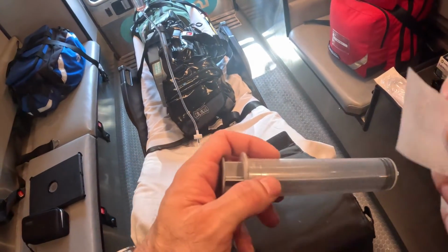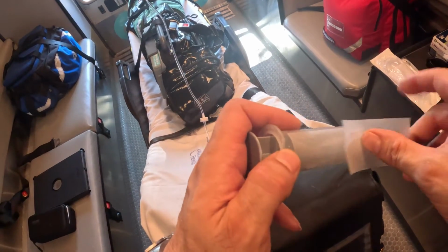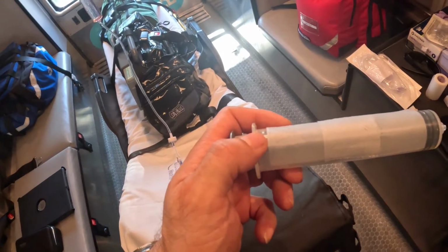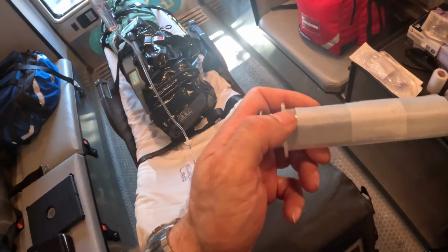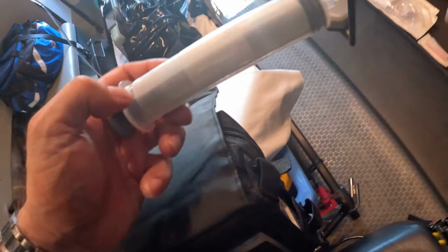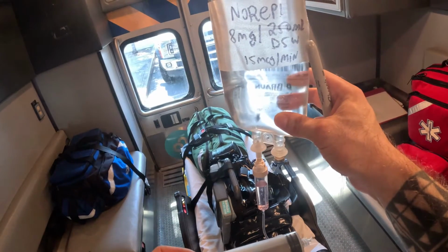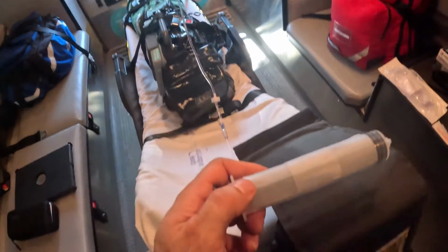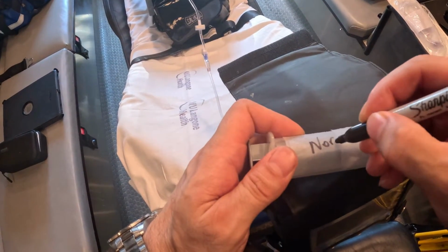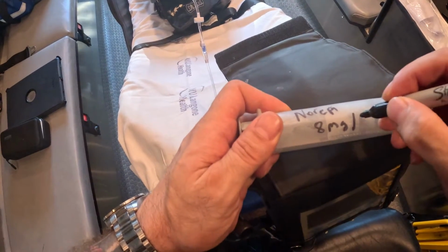It's very easy. You basically put tape on your syringe like so. You put 2 if you like, and then what I usually like to do is carry a Sharpie marker with me, and I use my Sharpie marker to write what I need to infuse. What I'm writing here is basically copying the label that's on the hospital bag. So here I'm going to record Norepi, it's 8 milligrams in a 250 bag.